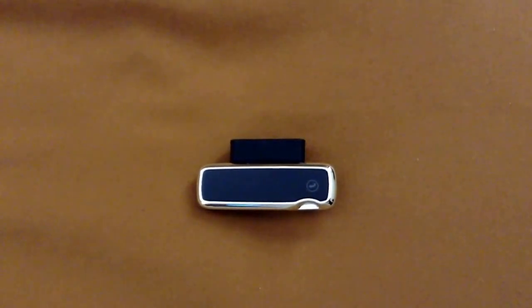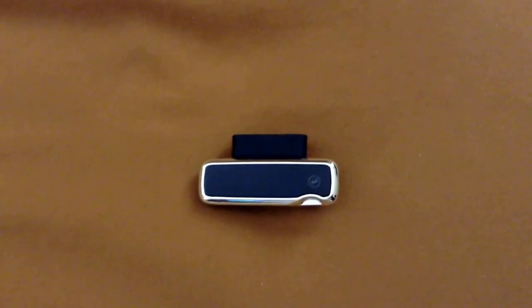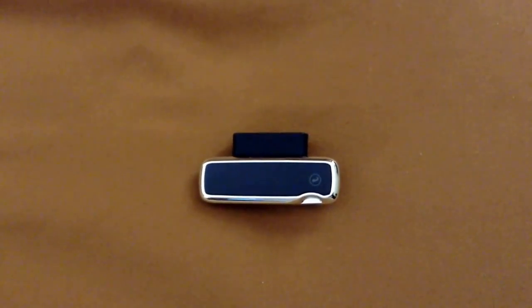Hey guys, this is a short video showing my blood glucose meter. It's called the IBG Star blood glucose meter and it connects to the iPhone 4 and iPhone 4S.